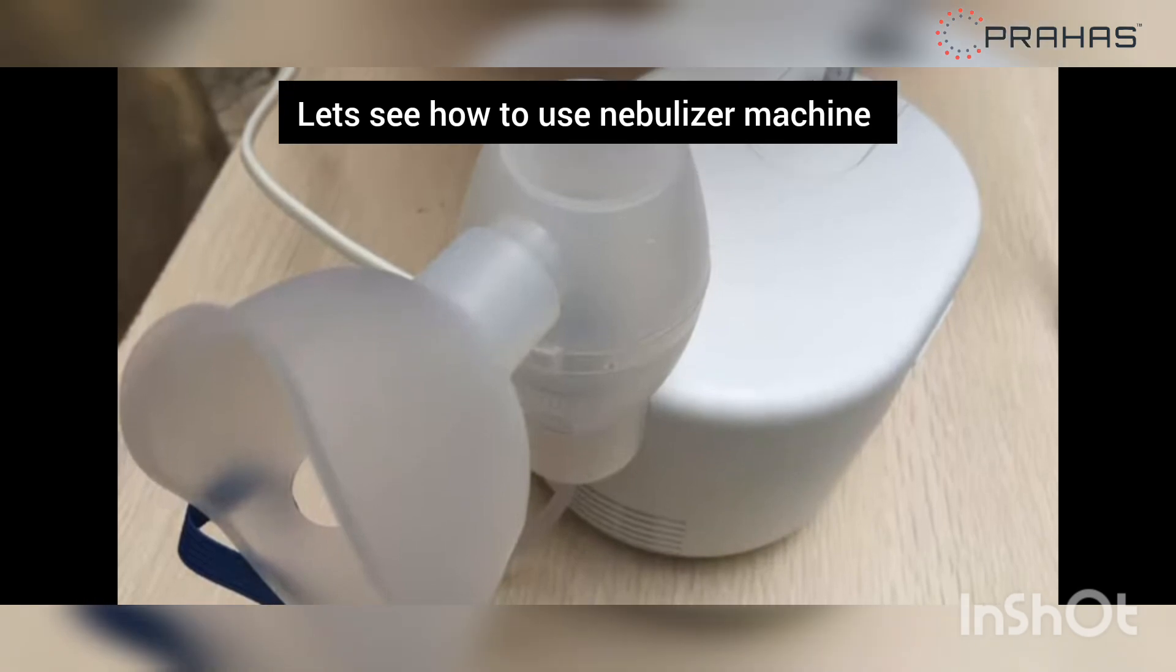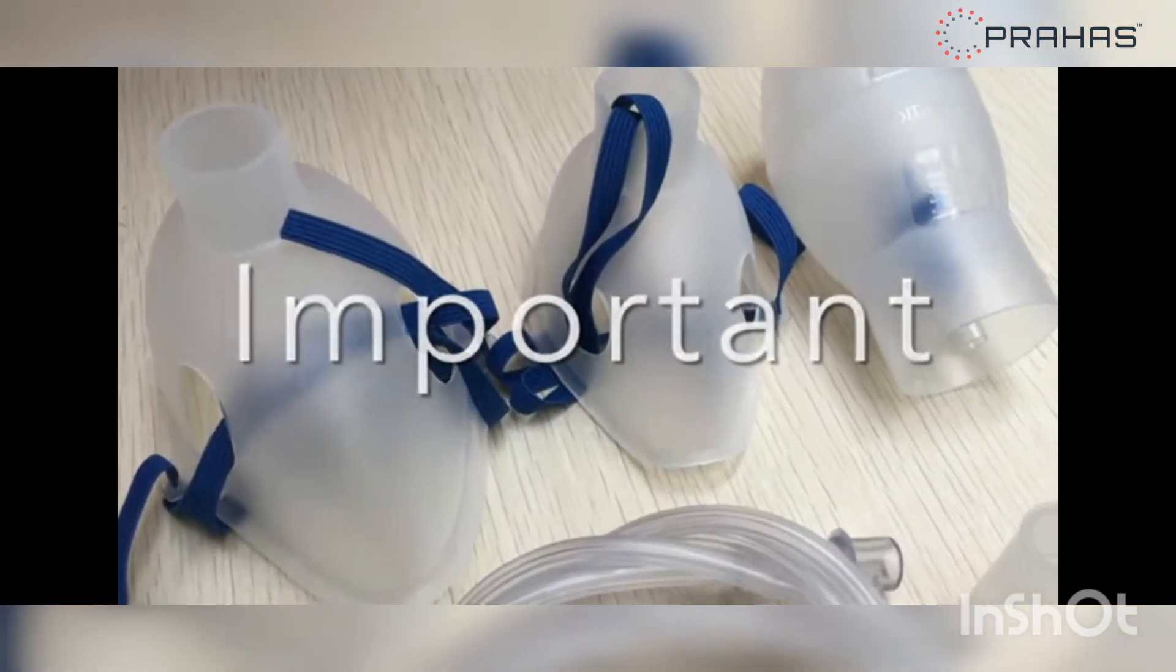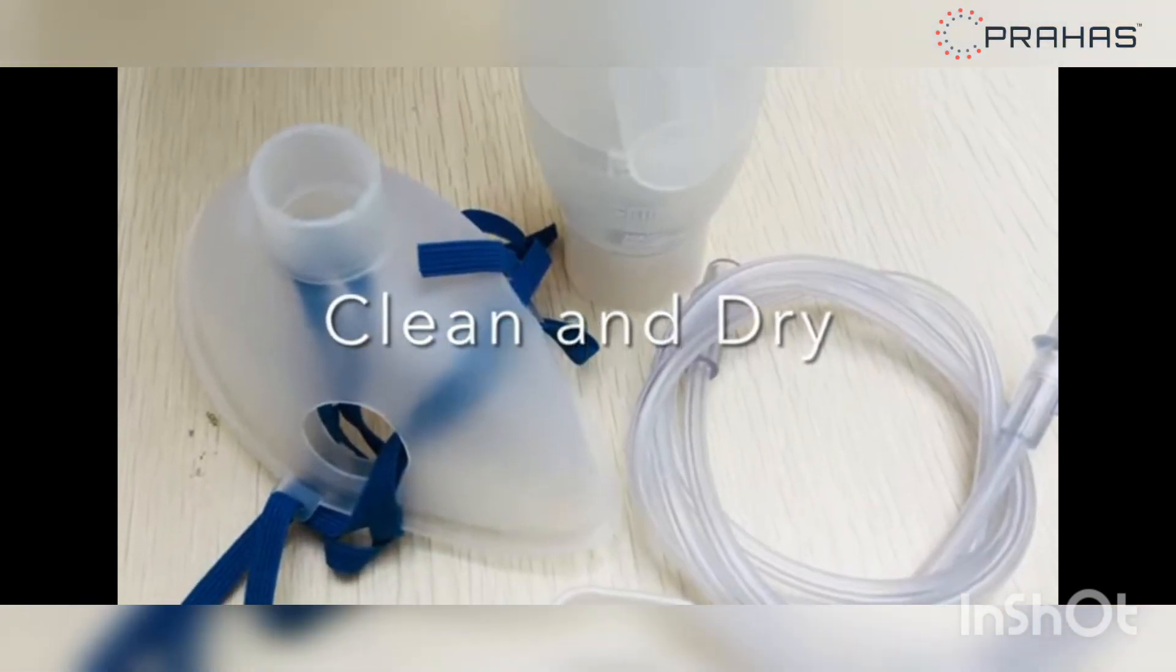Let's see how to use Omron nebulizer kit. First important thing to check is the kit is clean and dry.